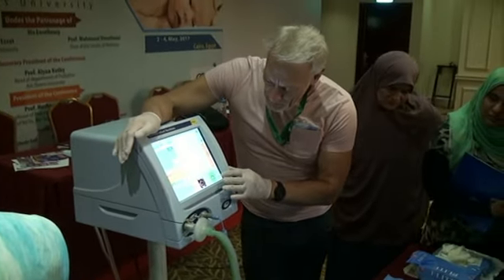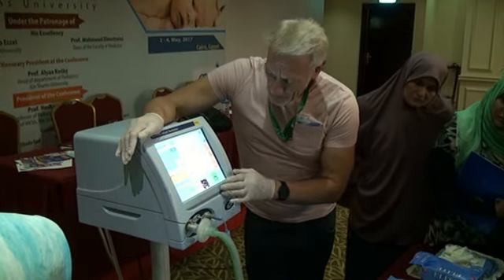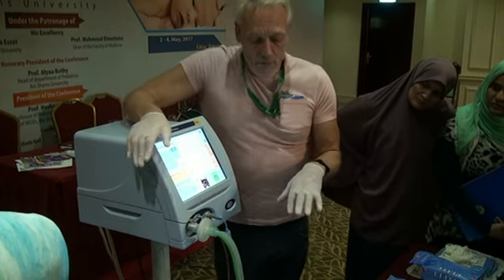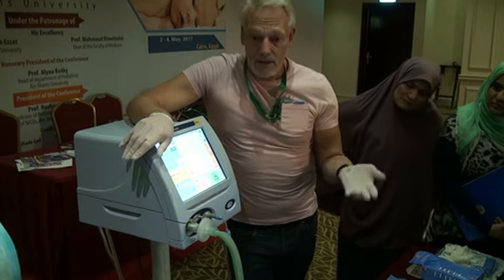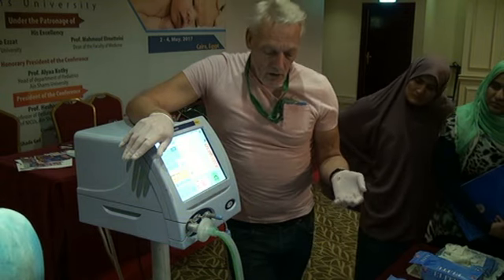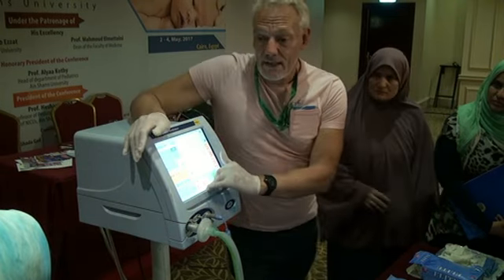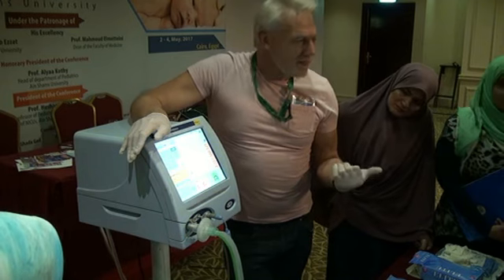One of the things that I'm sure you have seen a number of times is what happens when we get a disconnect or when there's an accidental extubation. And what's interesting is the difference between whether you've got the right settings or not is how a lung recovers. So who has inline suctioning?